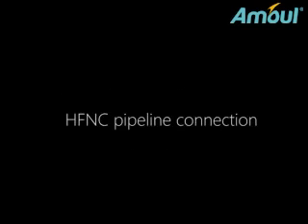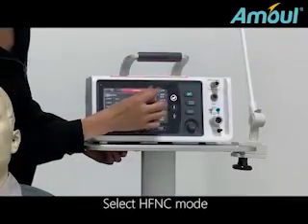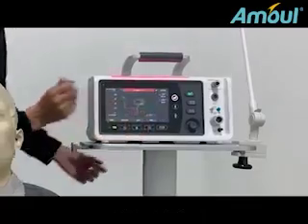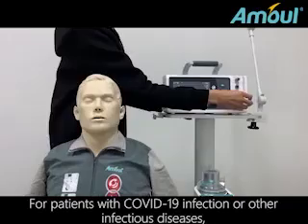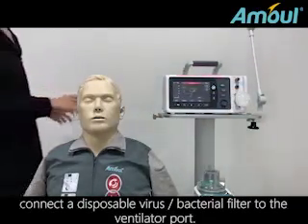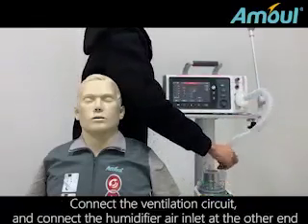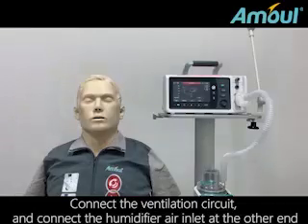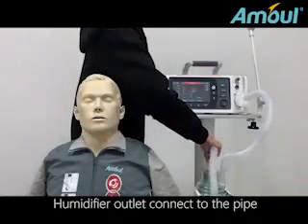HFNC pipeline connection. Select HFNC mode. For patients with COVID-19 infection or other infectious diseases, connect a disposable virus bacteria filter to the ventilator port. Connect the ventilation circuit and connect the humidifier air inlet at the other end. Humidifier outlet connects to the pipe.